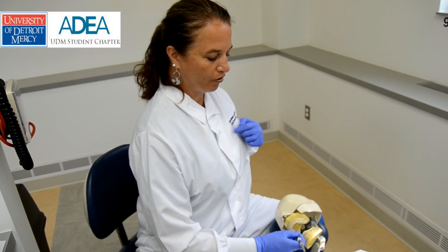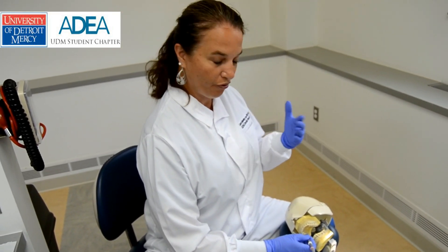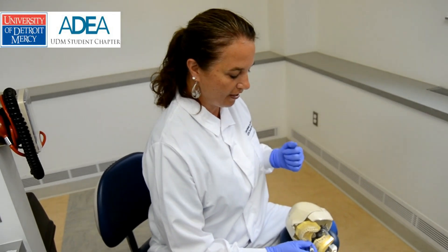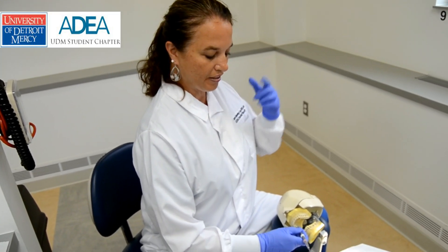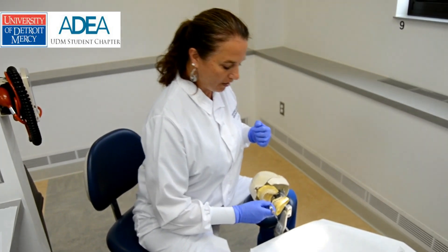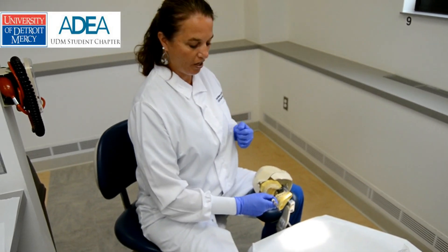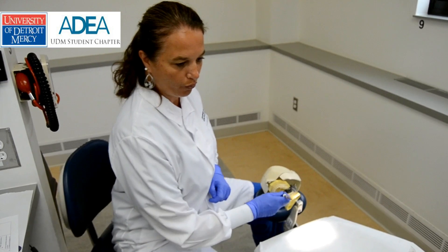Look out the bottom of your glasses. Normally I would have all PPEs on — glasses and masks — but we're not doing that for video purposes. Looking out the bottom of your glasses and bending forward to see will help, but following your wrist is number one.